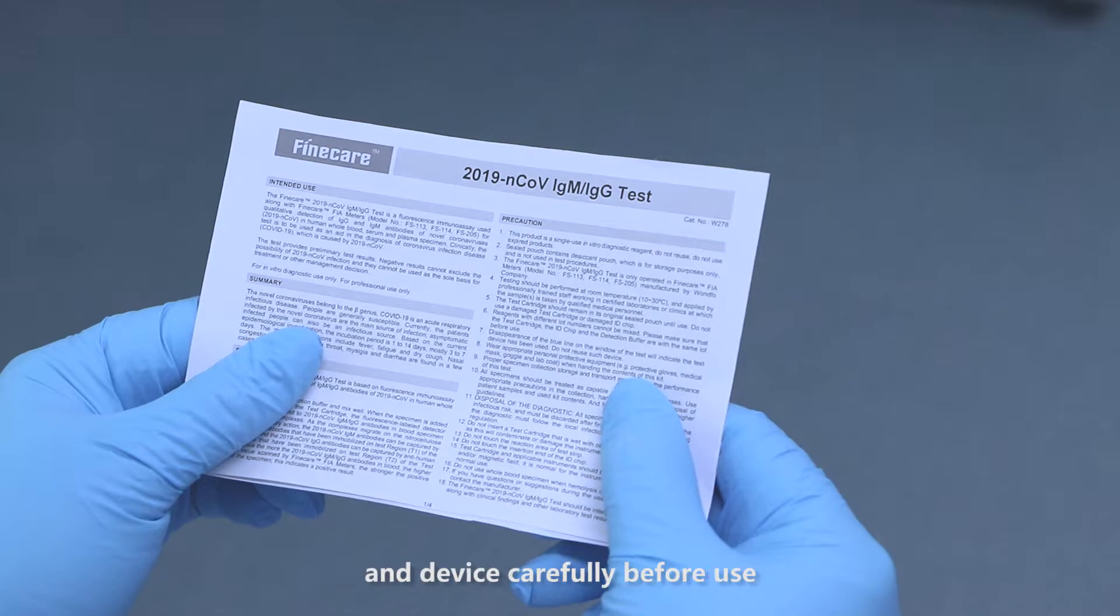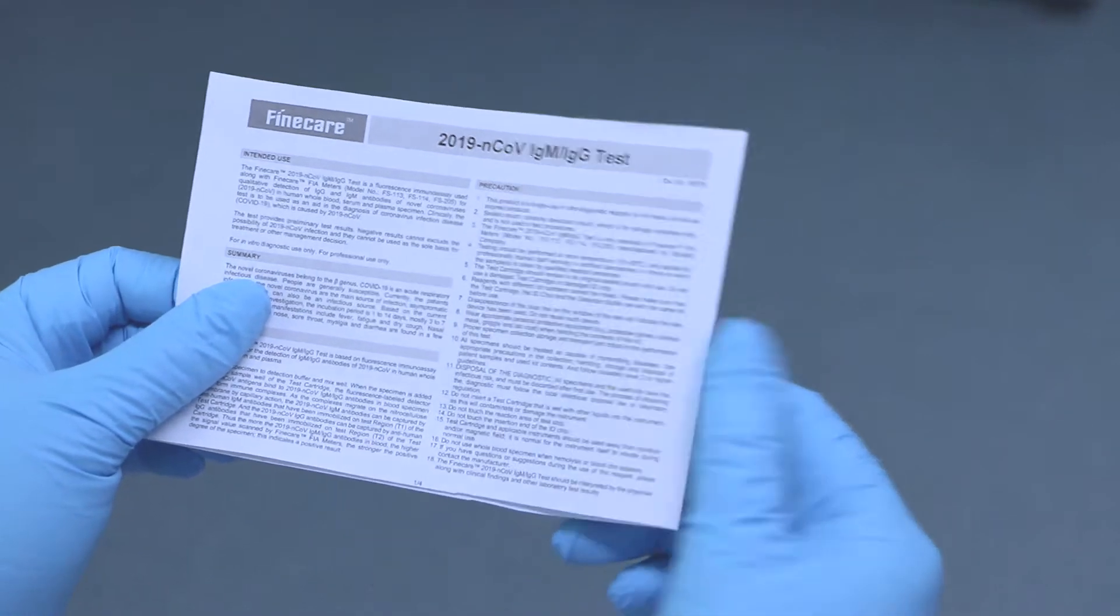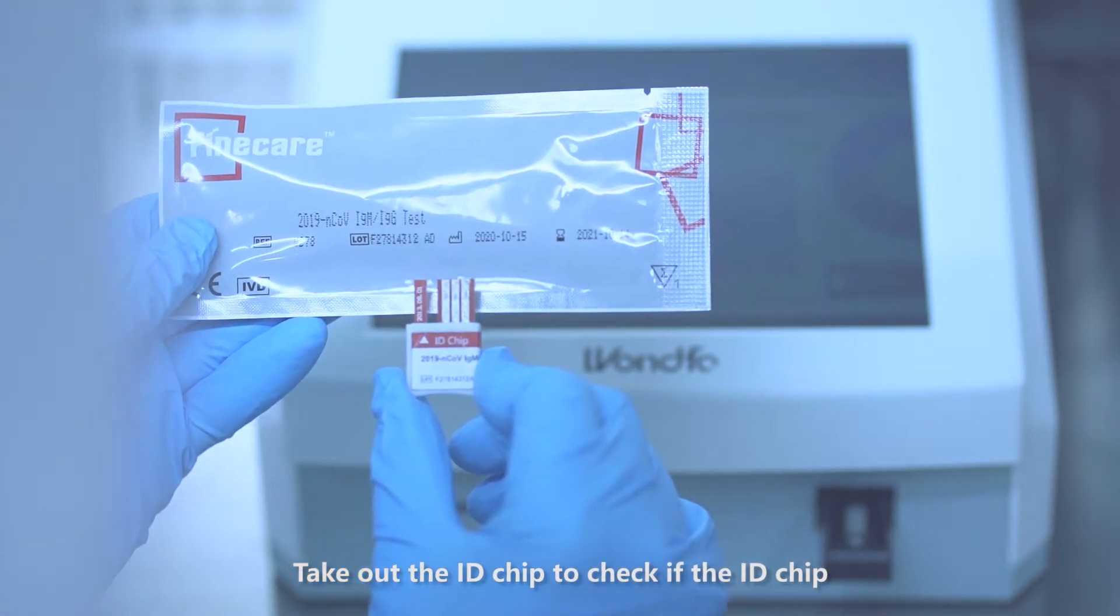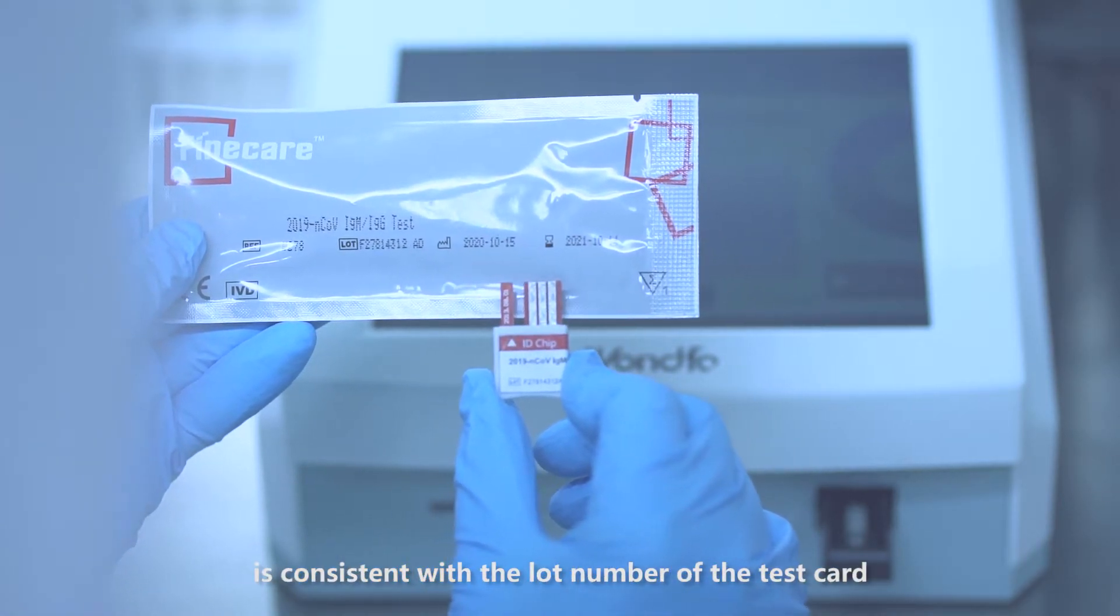Please read the instructions of reagent and device carefully before use and correctly select the sample type. Take out the ID chip to check if the ID chip is consistent with the lot number of the test card.